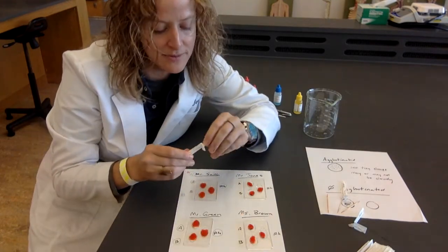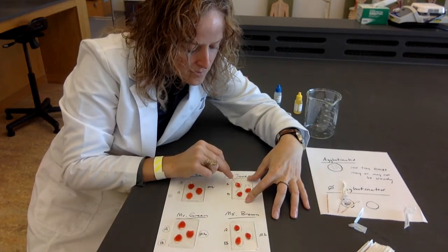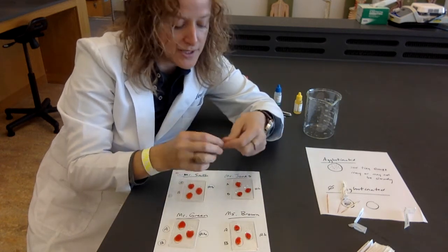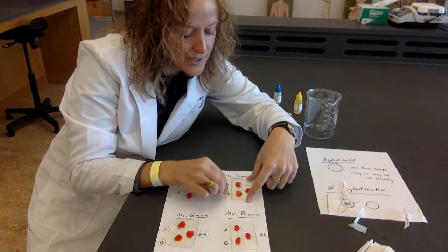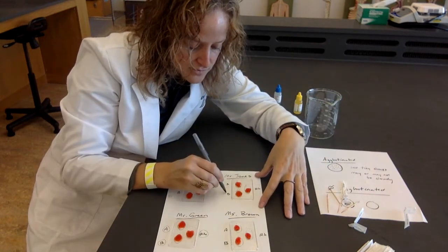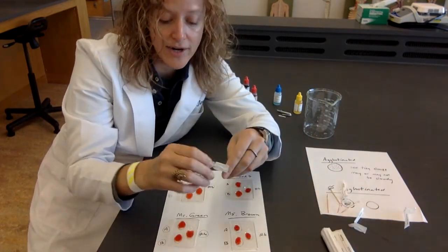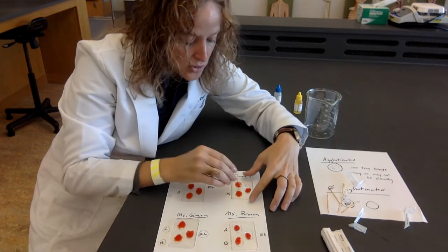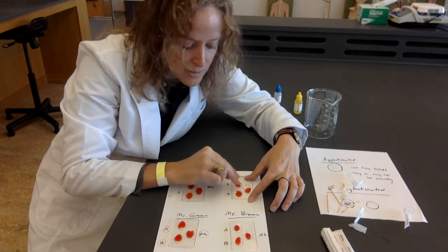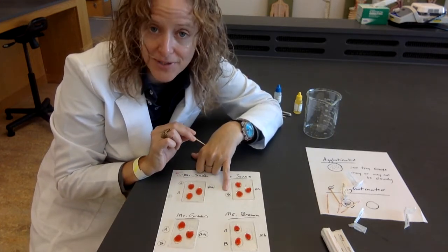Let's continue on. Let's do Mr. Jones. I'm going to do the A. Nothing. I'm going to do the B. Oh yes, we got some little dots moving around in there, some little chunks. So far for Mr. Jones, the B has agglutinated. And let's check the RH to determine whether that B goes along with an RH positive or an RH negative. No clumping. I got nothing. So for Mr. Jones, it was only the B that agglutinated.